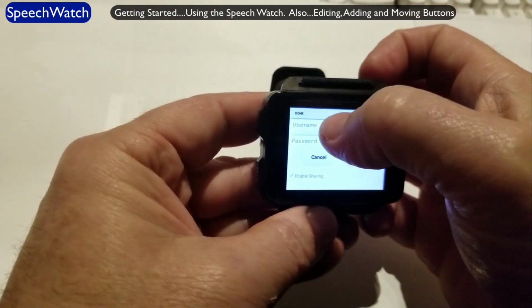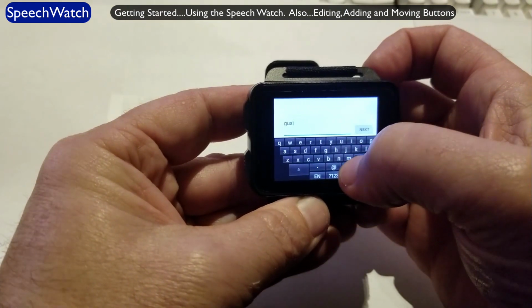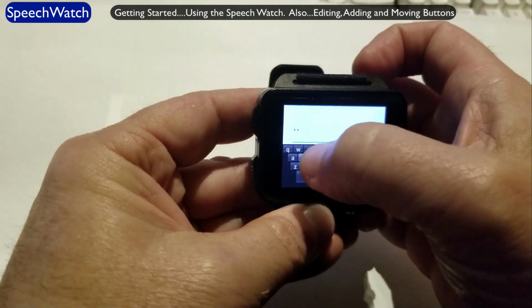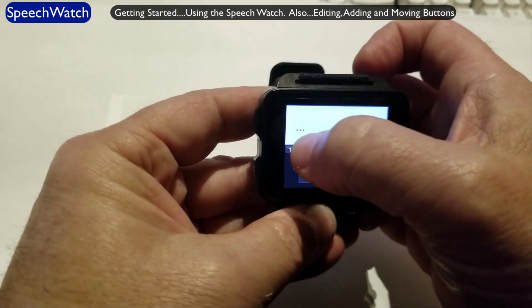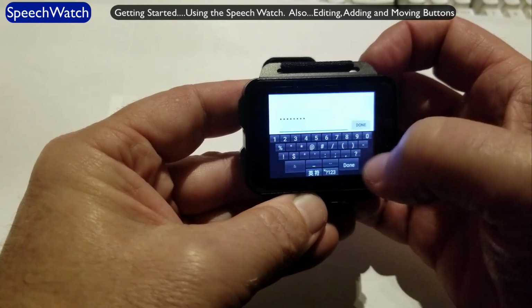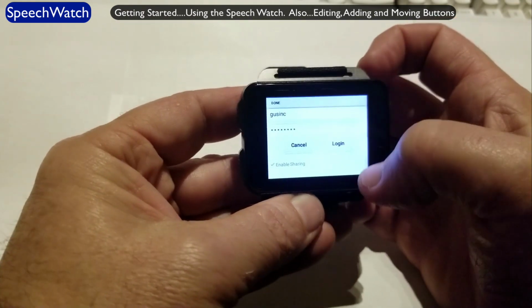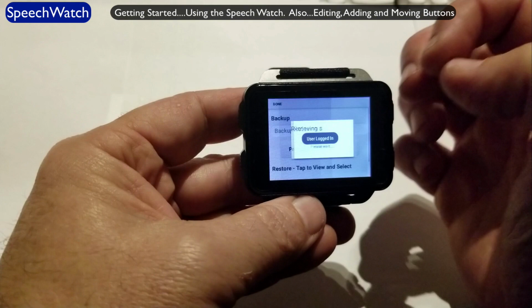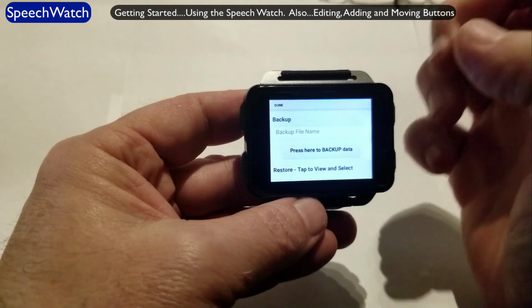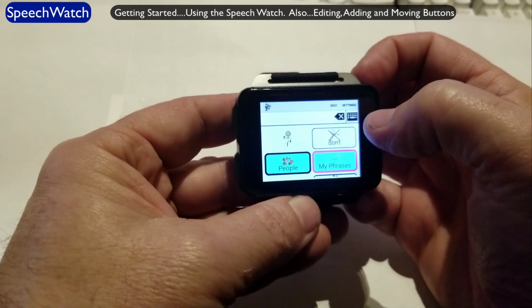So if I log in here, and put in my password, and say login. It's logged in. This watch, the SpeechWatch, is logged into our cloud server. It's absolutely fascinating. I can use this now to do backups. I can use it for all kinds of cool things.